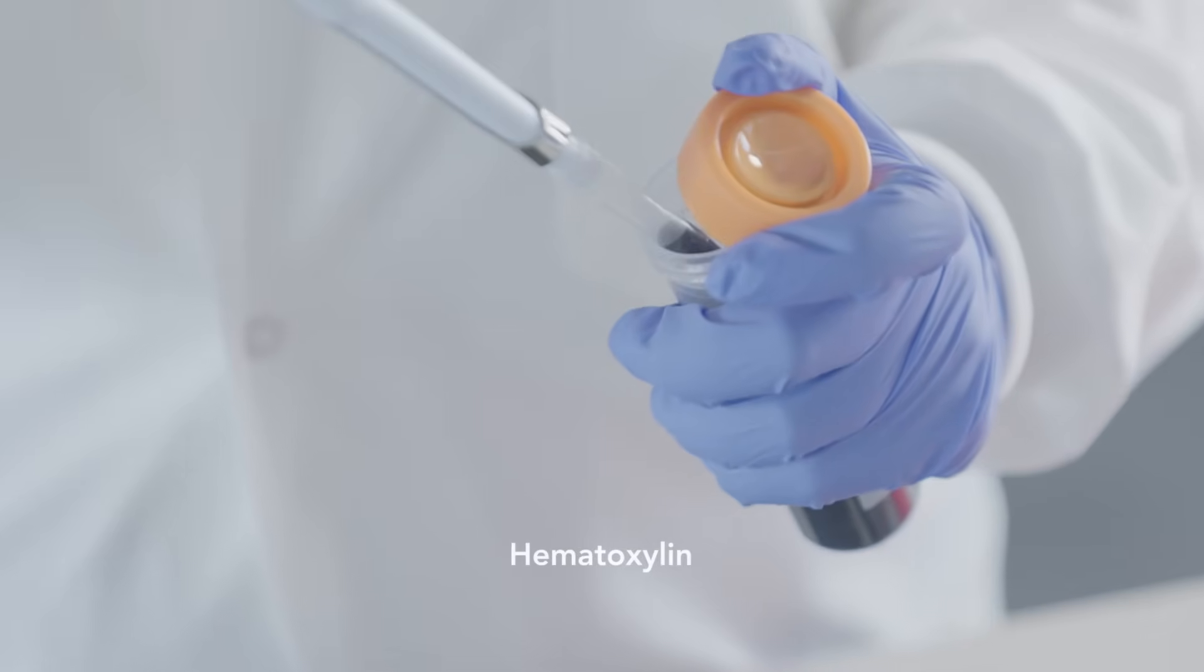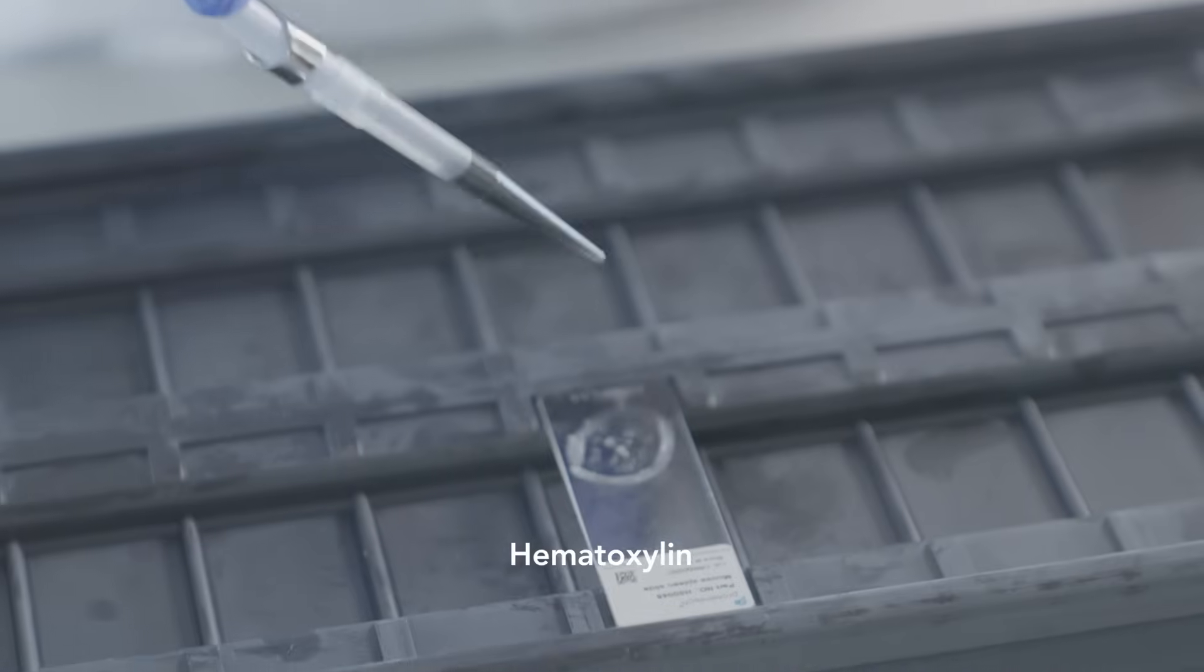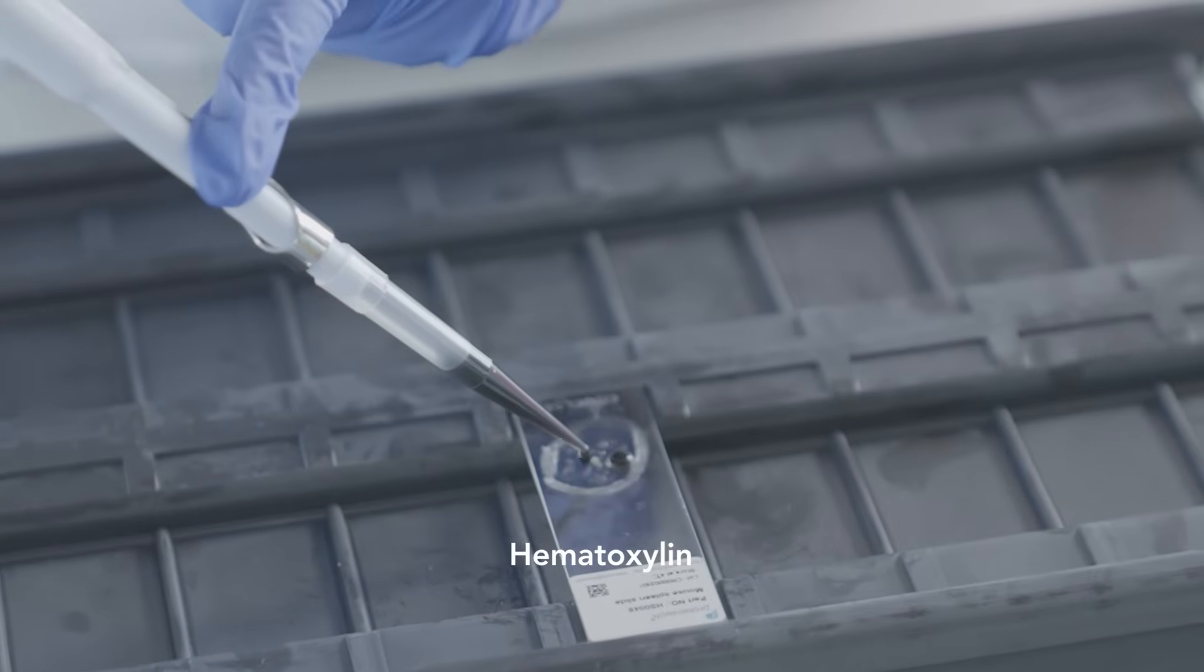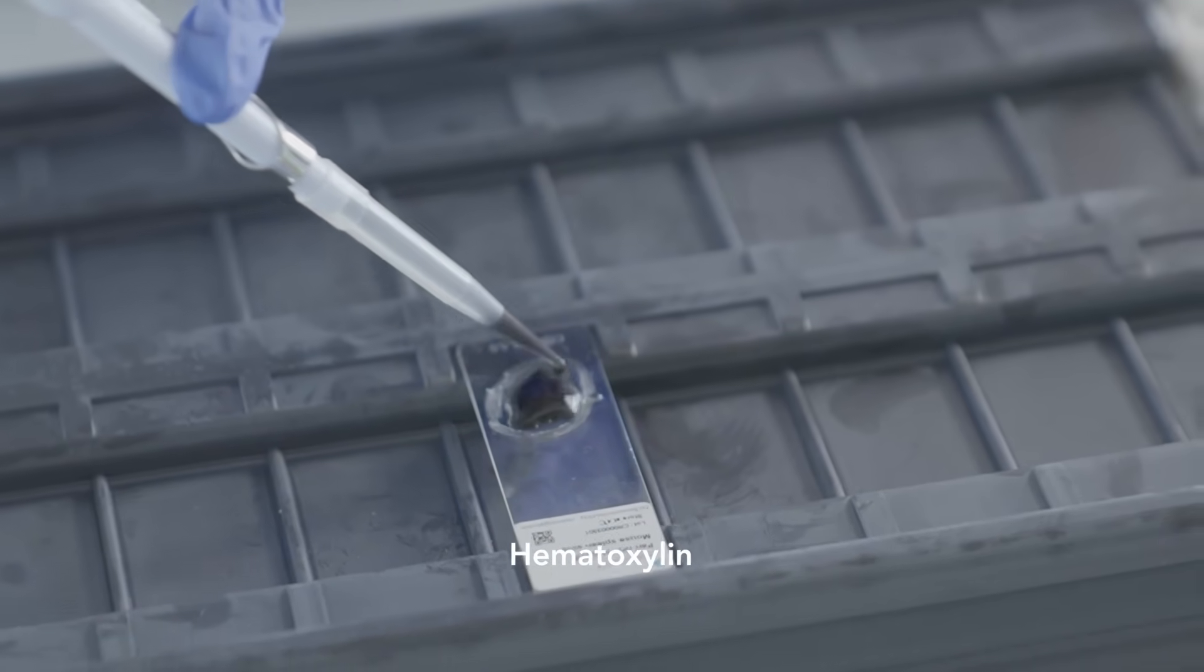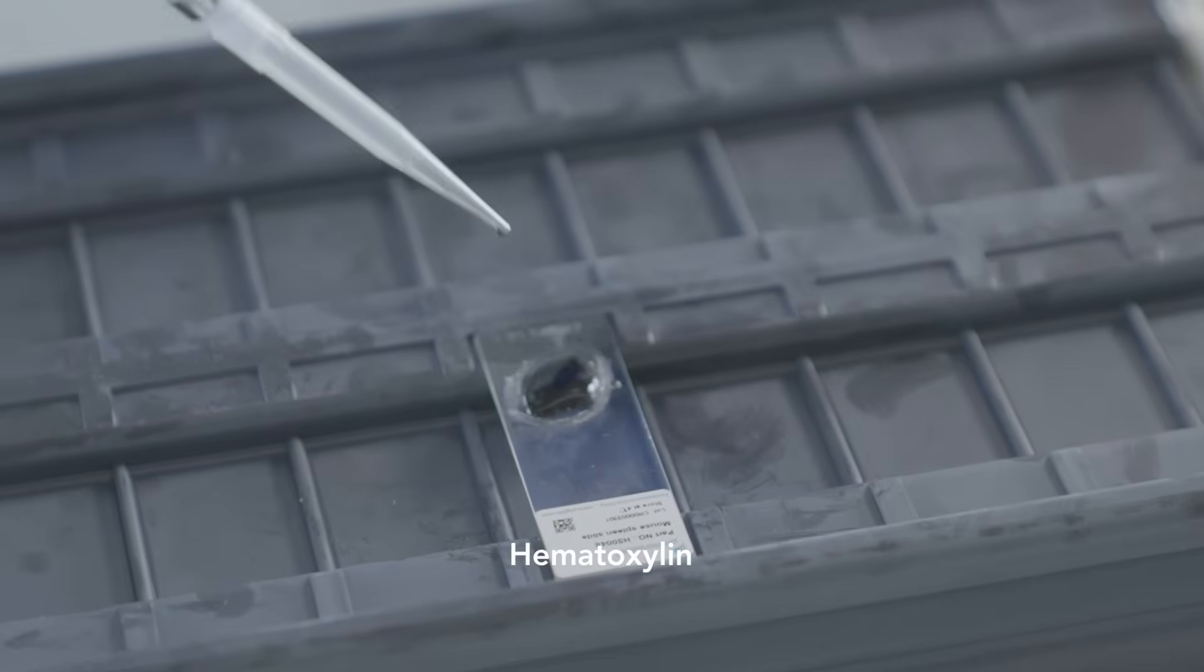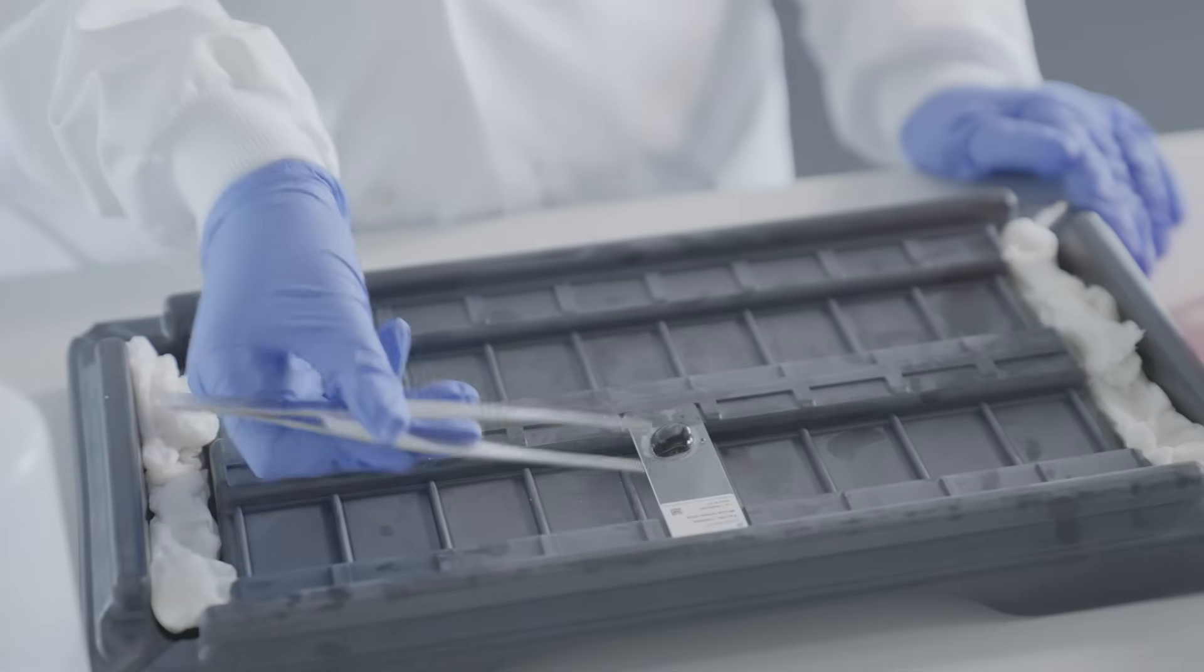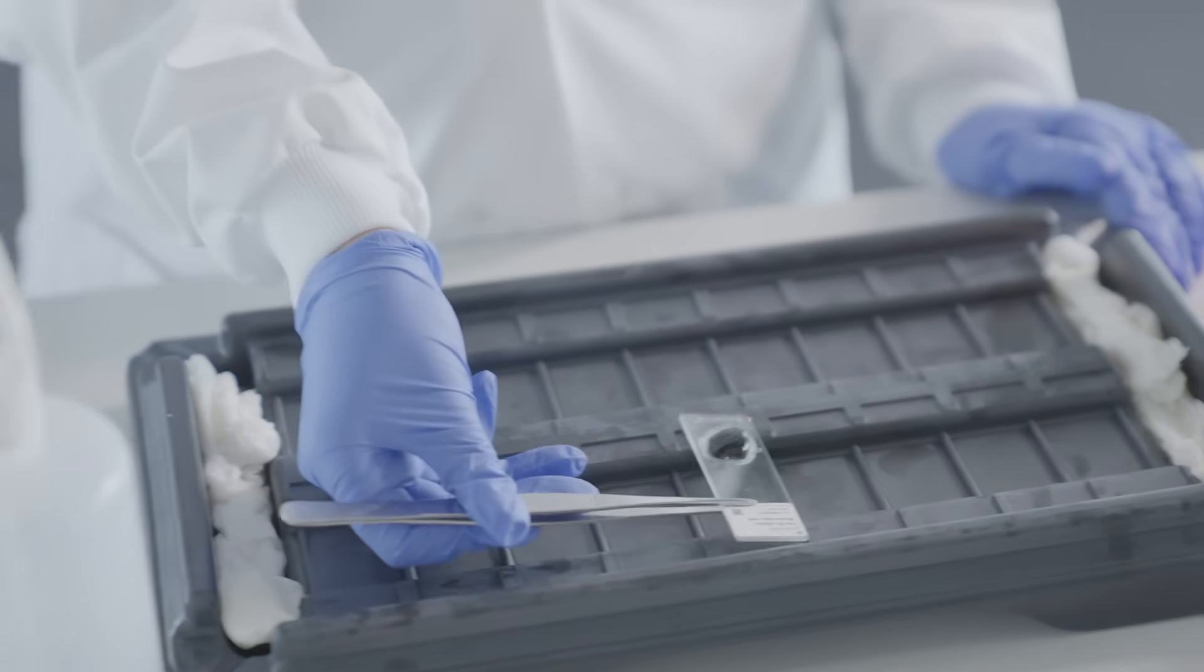To stain nuclei, add a few drops of hematoxylin and incubate for three minutes. This stains the nuclei blue and allows for better visualization of the tissue. Rinse slides gently with distilled water.